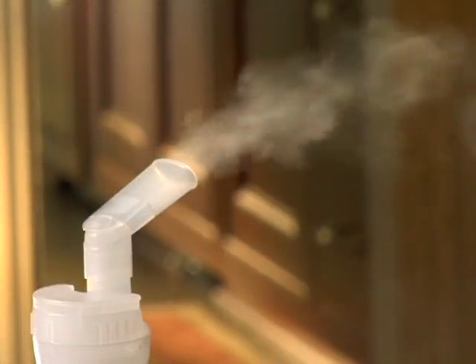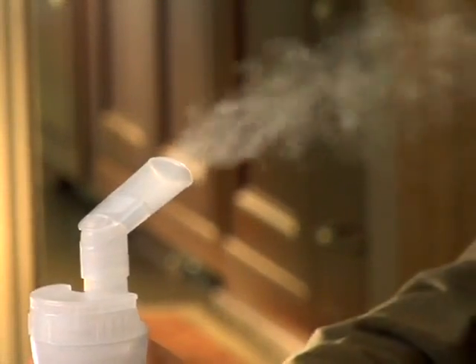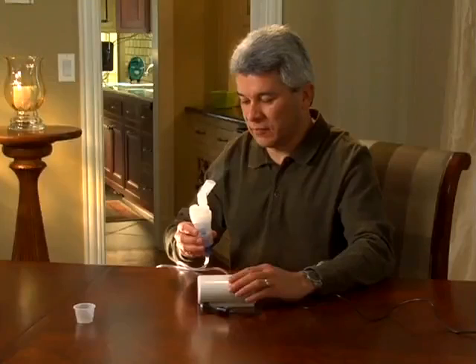Your doctor has prescribed a nebulizer for you to help your breathing. Nebulizing is a simple and effective way of getting medicine prescribed for a respiratory condition deep into your lungs. To get the best results from your nebulizing treatment, it's important to follow your doctor's orders and product instructions.